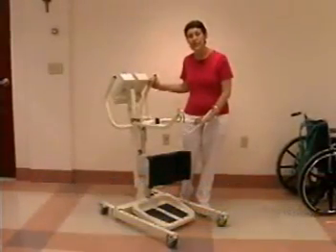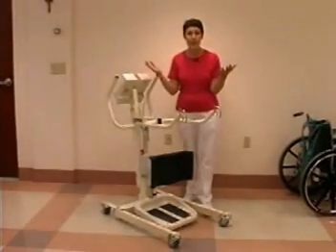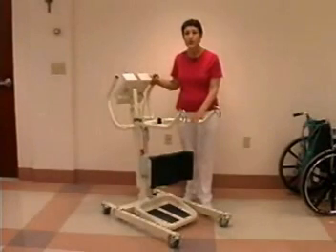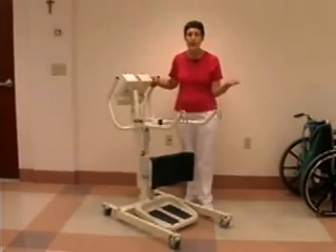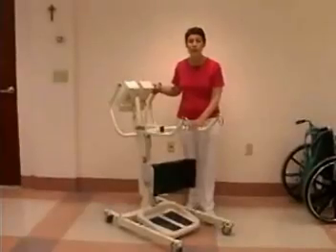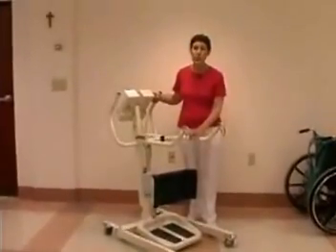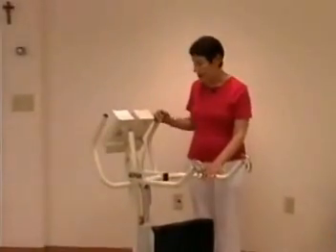You've just seen the Hoyer lift, the lift that lifts the patient's body completely. Now I'm going to be showing you the standing lift, a lift that can be used to lift a patient from one seated area to another seated area. For example, this lift can be used to lift a patient from the side of the bed to the wheelchair or from the wheelchair to the toilet. Remember that this lift is not meant to be a conveyance, however, so you wouldn't use this lift to move a patient down a hallway.